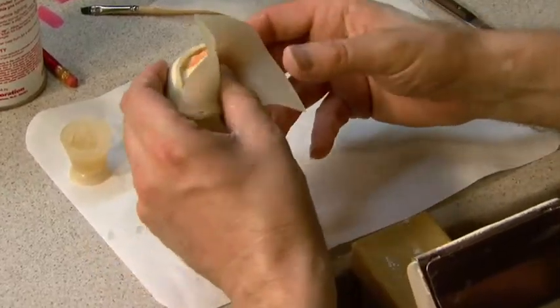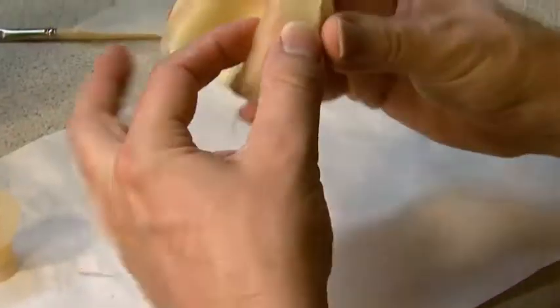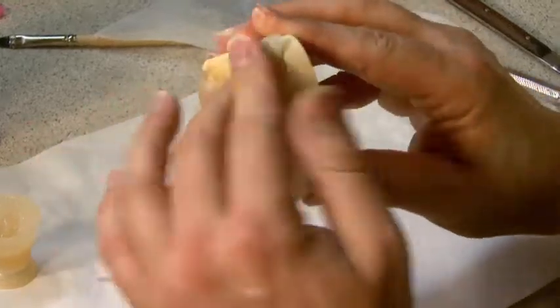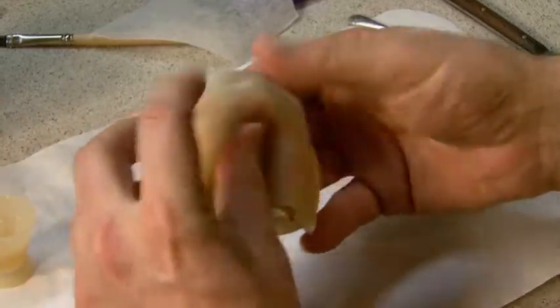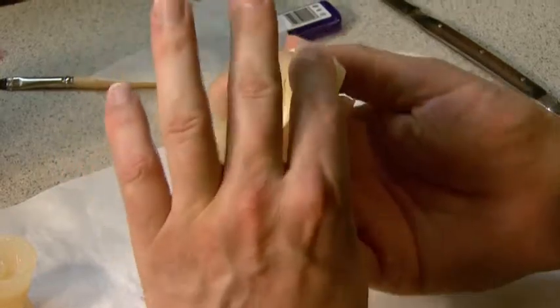When fabricating the secondary trays, it manipulates very, very well — it's easily adapted. The objective this time is to fill the mucobuccal fold to within the inner line angle of the landing area. The objective is to put lots of pressure and intimate contact with the master cast and the interior areas of the base plate.